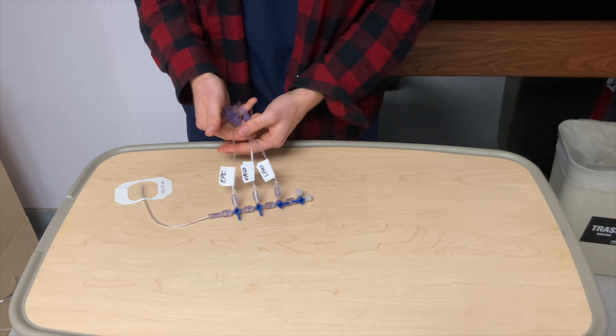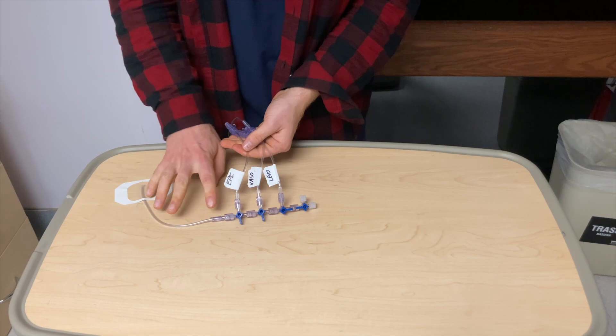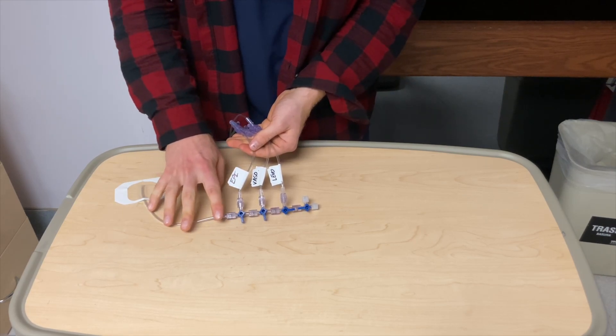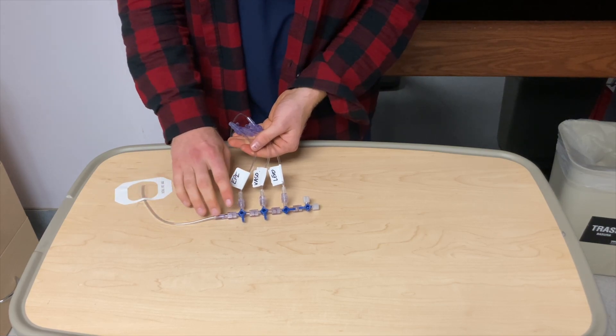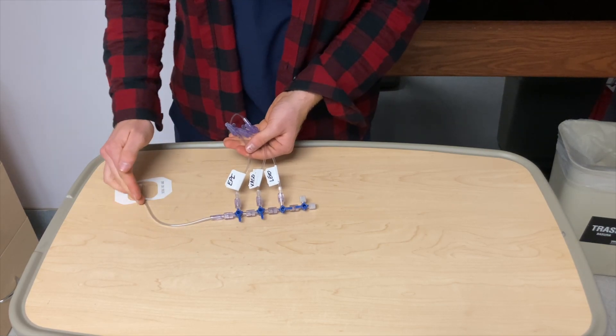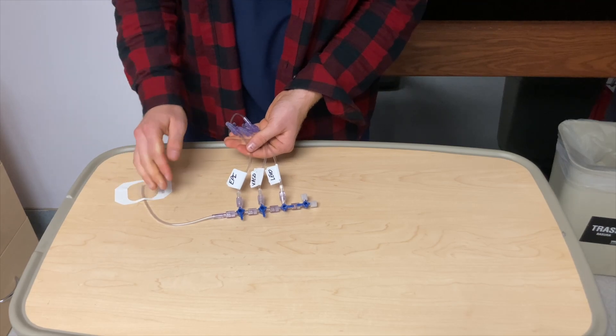It's very important that when you have a patient, if there's extension tubing to remove this, that way, the amount of time between a rate change and your vasopressor drips, the amount of time that it takes for it to travel to the patient is less.